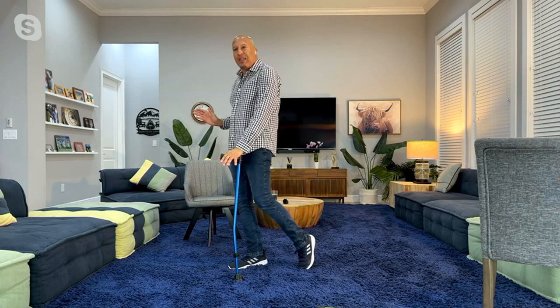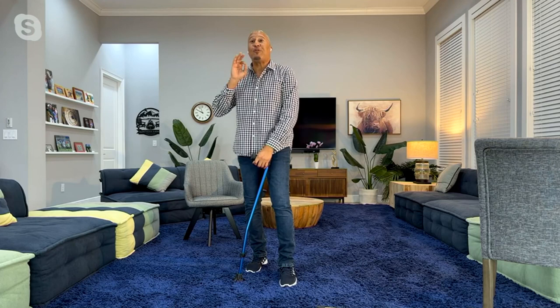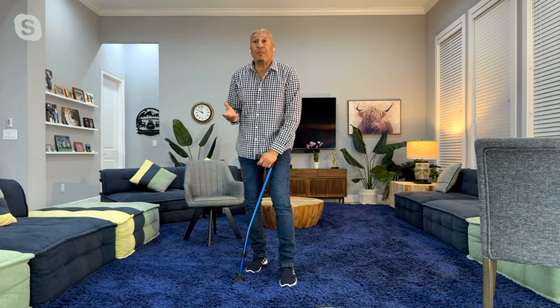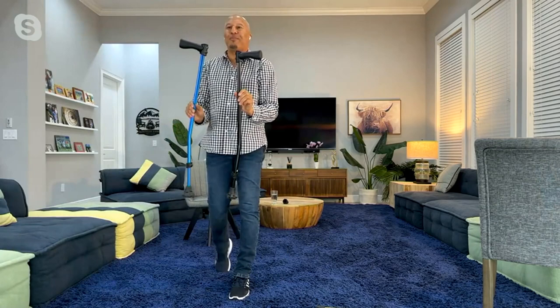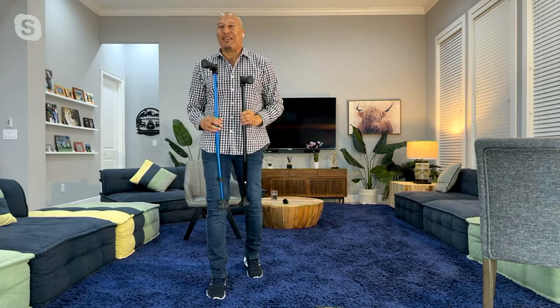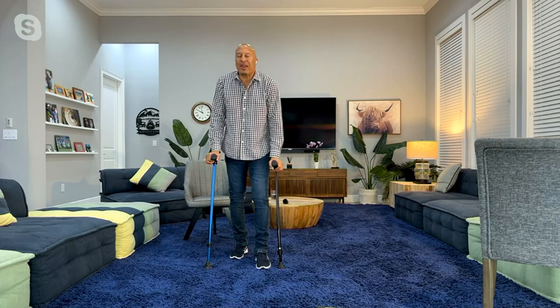This is why the Cyclone Cane is the best cane ever. This is why we've sold out of it in the United Kingdom, and why we've sold thousands of them over the last two weeks on QVC. By customer reviews, this is the best cane you can have, whether it's in the blue or the beautiful black. Get one for yourself and get one for a relative or a friend. The cane is different — don't think it's anything like the one you own already. It is not. And if you give it a try and you think that it is, you can return it to QVC. Right now it's a wonderful deal — $39.95.